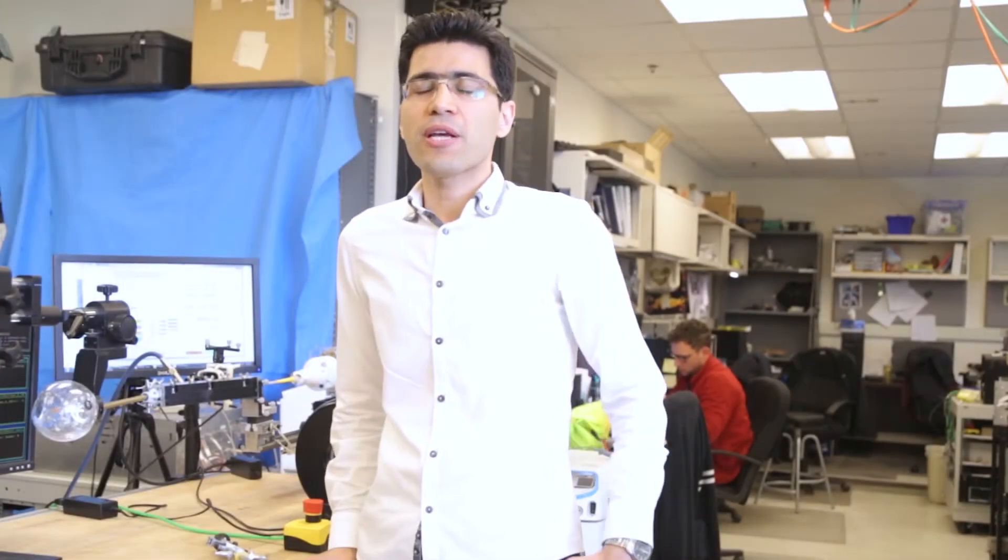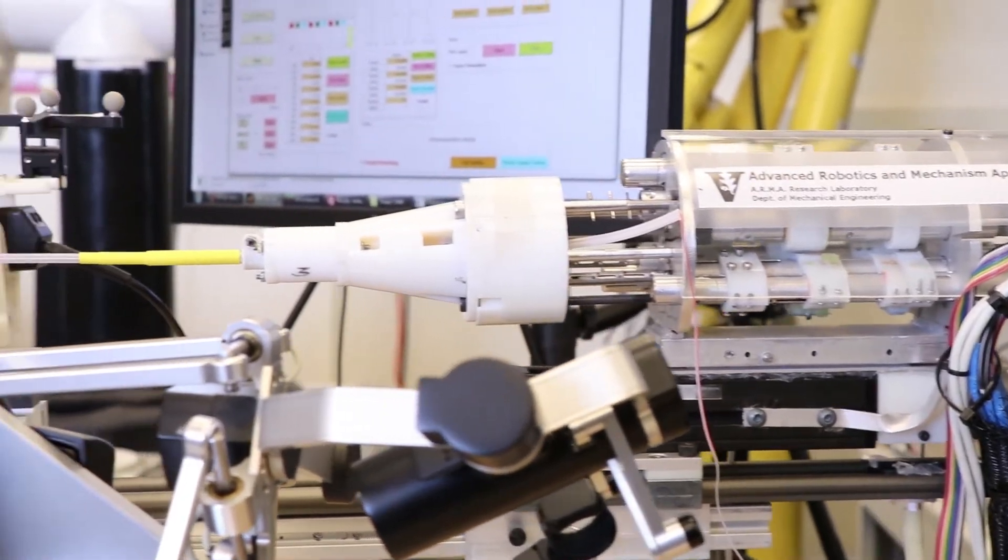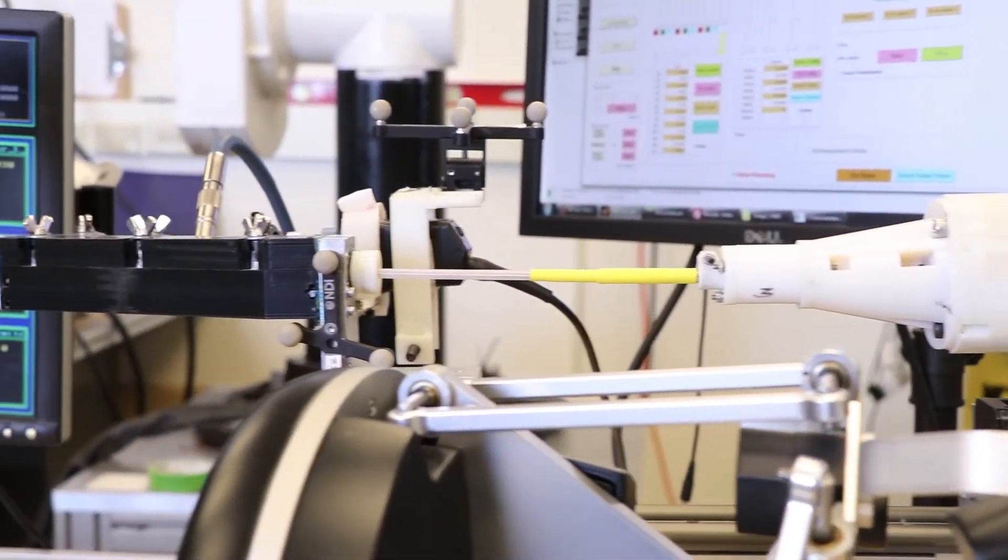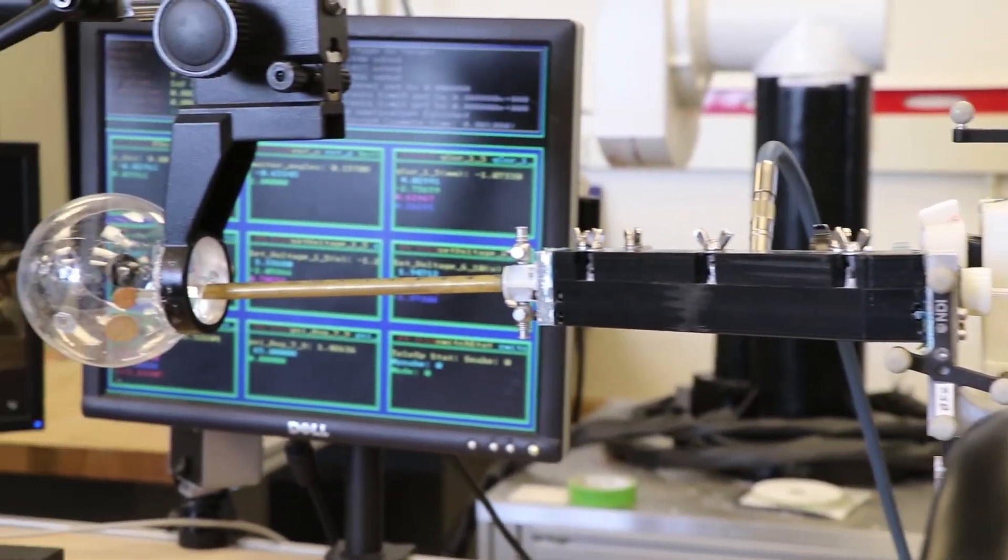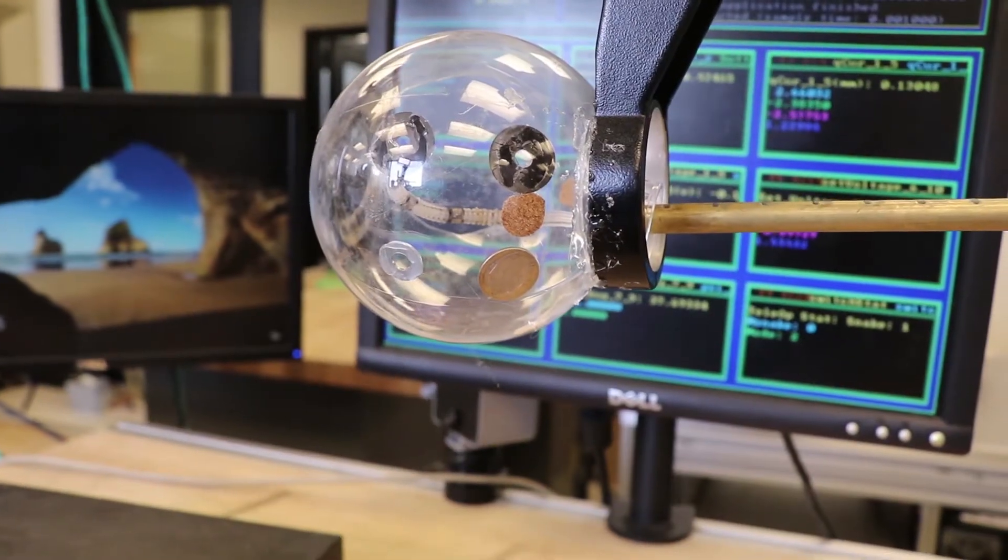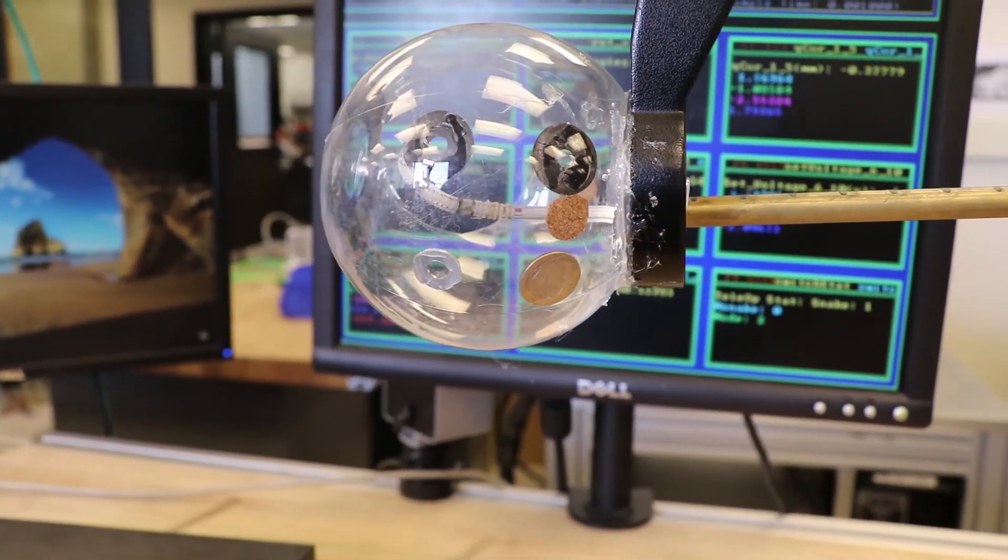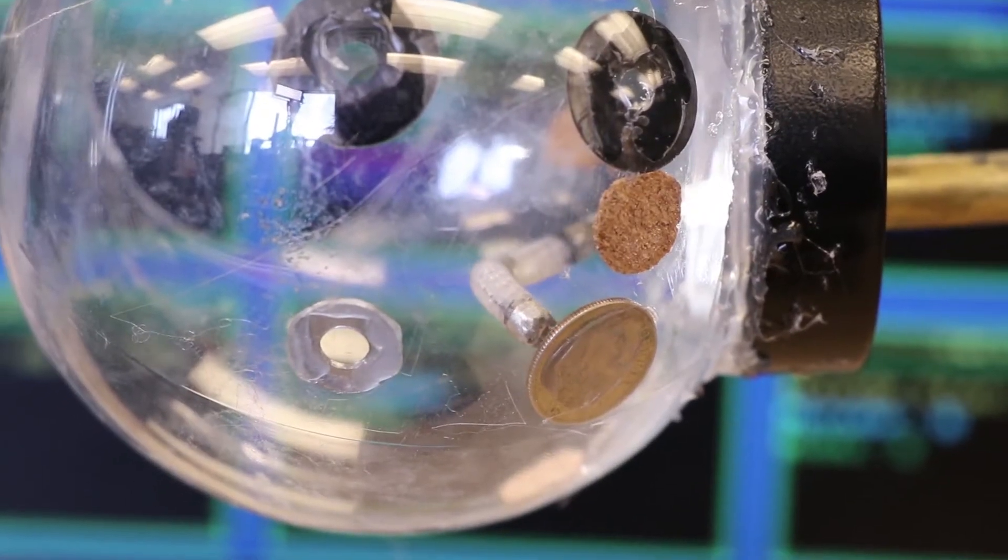One of the projects I've been working on since I joined ArmaLab is a snake-like device for bladder cancer diagnosis and treatment. It's a flexible device that can be deployed through the urethra inside the bladder. It has three working channels for deployment of surgical graspers, which are used for grasping tissues, a tiny camera, and other instruments.